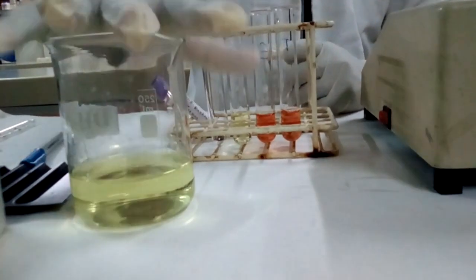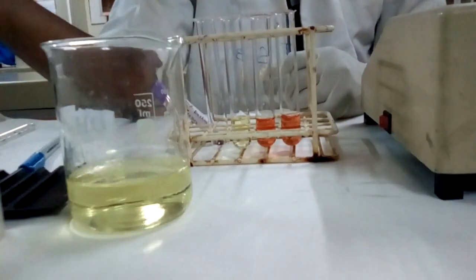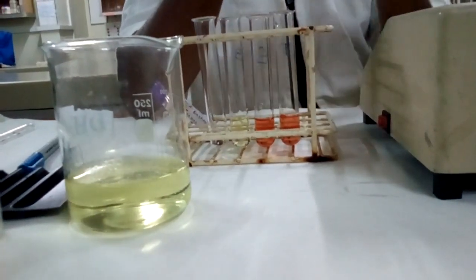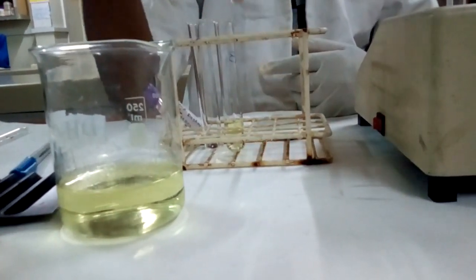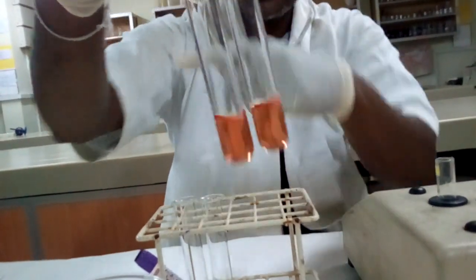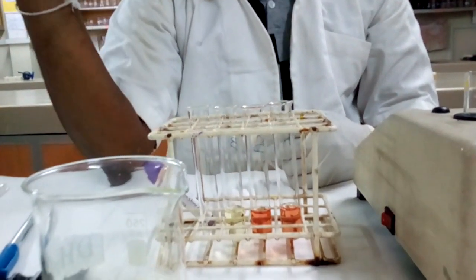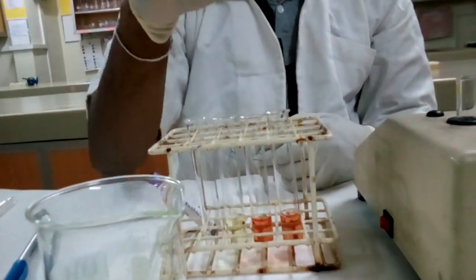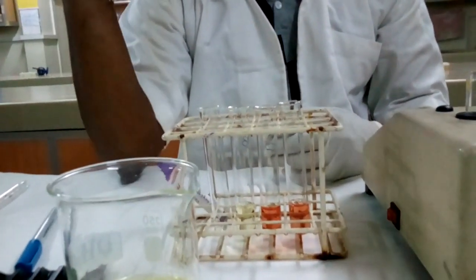The conversion time of the hemoglobin into cyanmethemoglobin with this solution is 3 to 5 minutes. Within 5 minutes, almost all the hemoglobin is going to be converted into cyanmethemoglobin. This is my test, this is my standard. The produced cyanmethemoglobin is going to be stable for an hour, but in the other method, the oxyhemoglobin method, the produced hemoglobin is not as stable as this.